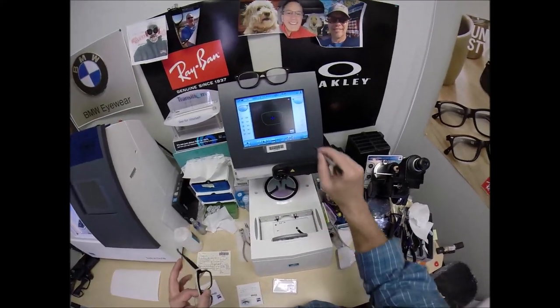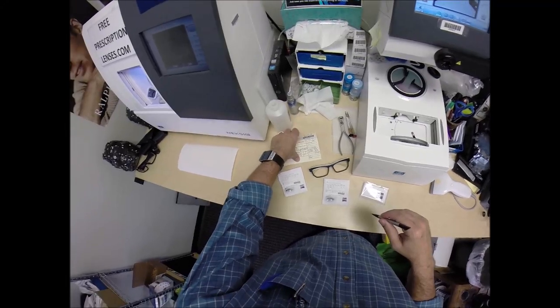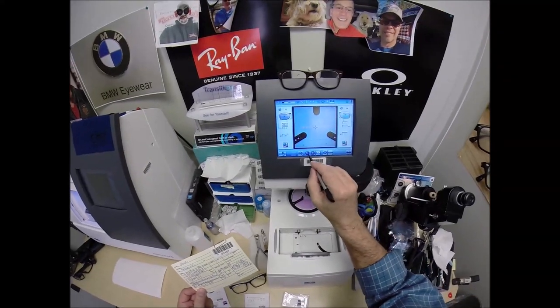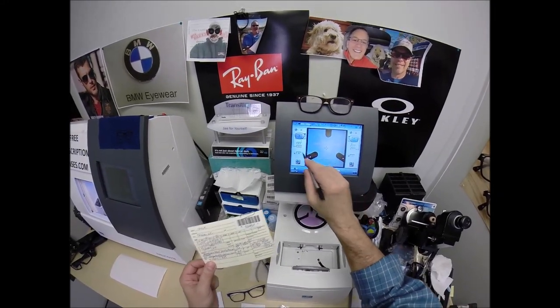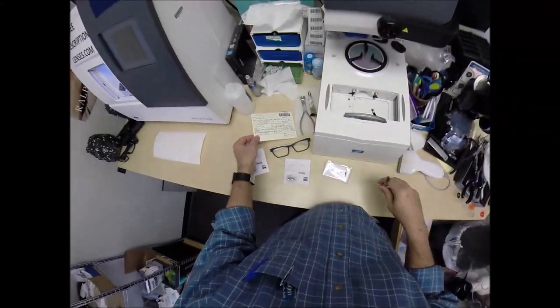That is the shape that I'll be cutting. I'm going to move on to the next screen and enter your pupillary distance. The right eye is 31. The computer starts at 32.5, so I tap the minus button until we get down to 31. I'm going to raise the optical center — the seg height — to position it at 24.